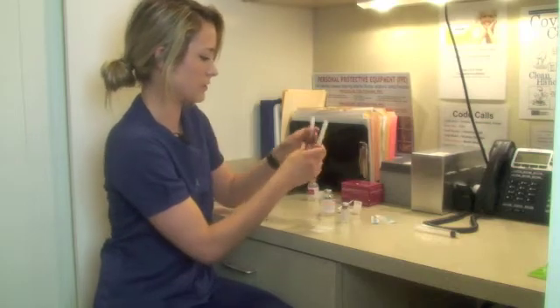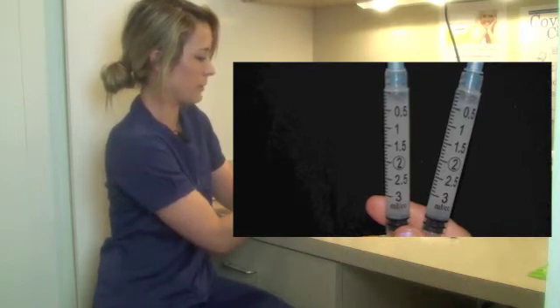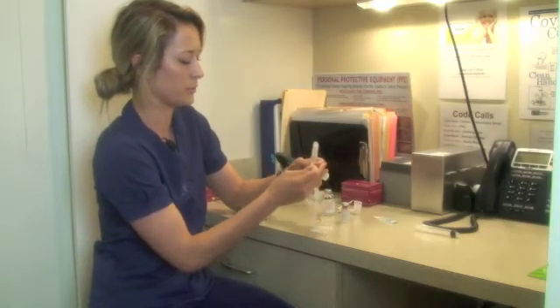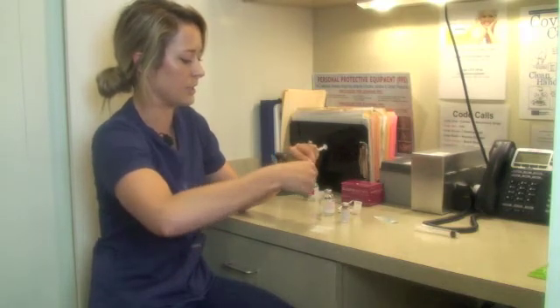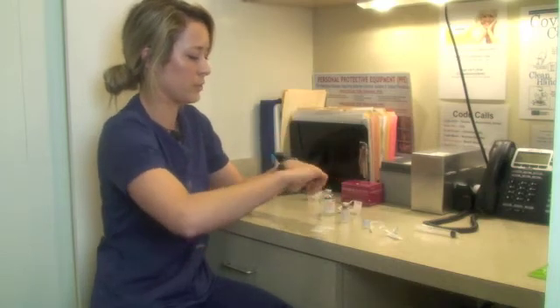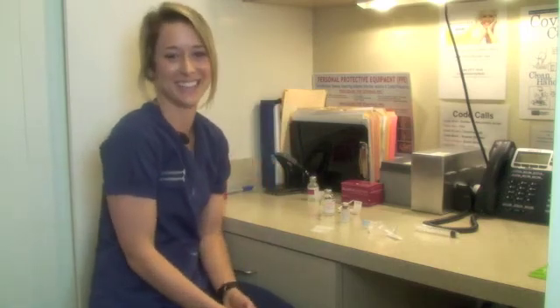Now you can see that both of my syringes look equal in cloudiness and both of them have a bubble. We use 25 gauge needles for injection. When you do inject, we like to have a couple spare ones so that if there is a clot in the needle, you can replace it quickly without having a big pause. So when you're in the room waiting, you can let the bubble go back and forth to keep the product mixed. We like to keep it underneath our armpit to keep it warm, because it doesn't clot as bad.